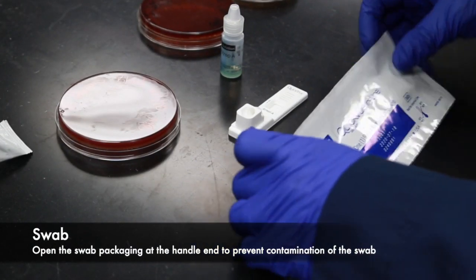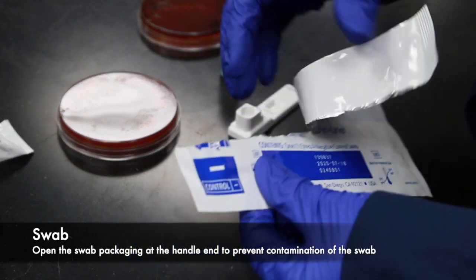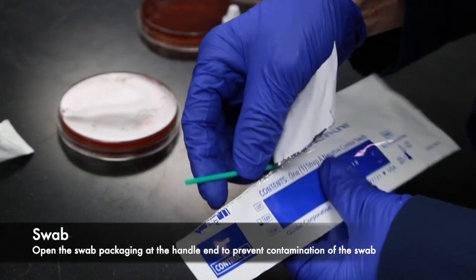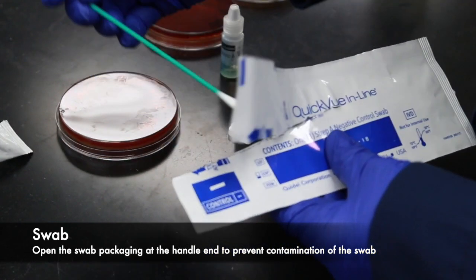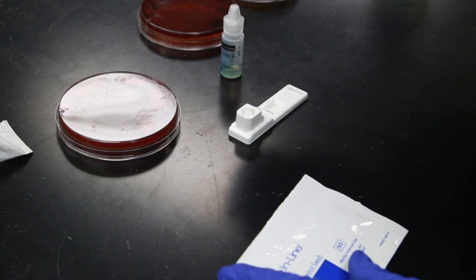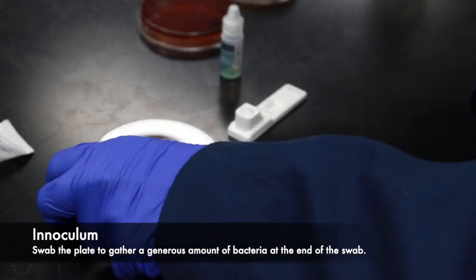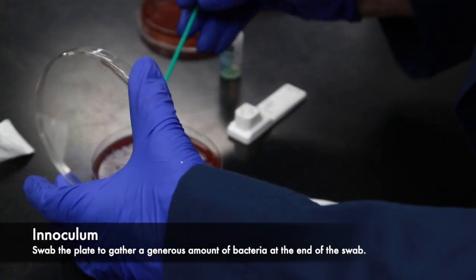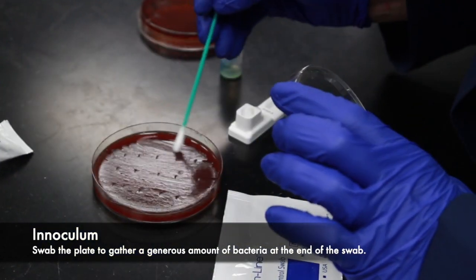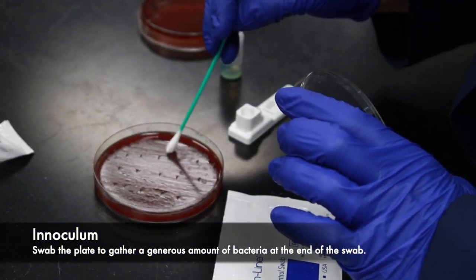Now we're ready to begin swabbing some bacteria. We're going to open the swab at the handle end to ensure that we don't contaminate the actual cotton swab that will be touching the bacteria. We then open the bacteria plate and generously swab bacteria onto the end of the cotton swab in order to ensure we have enough bacteria to get a good test result.